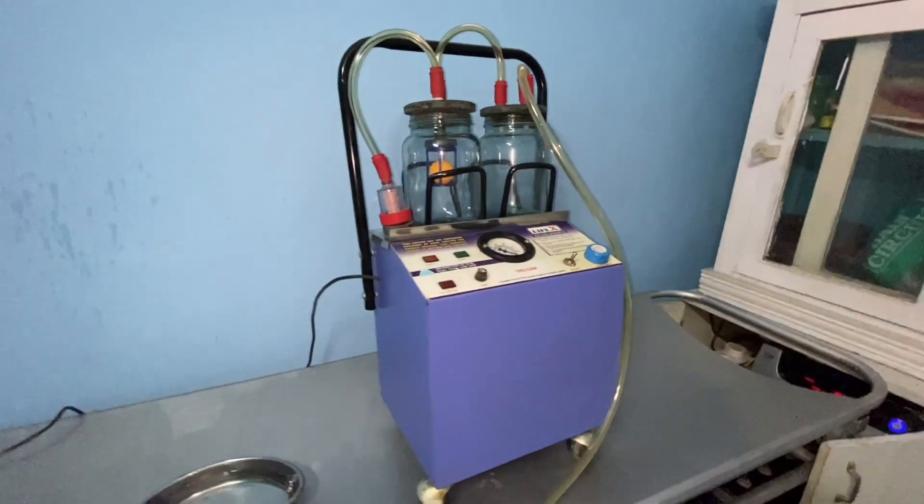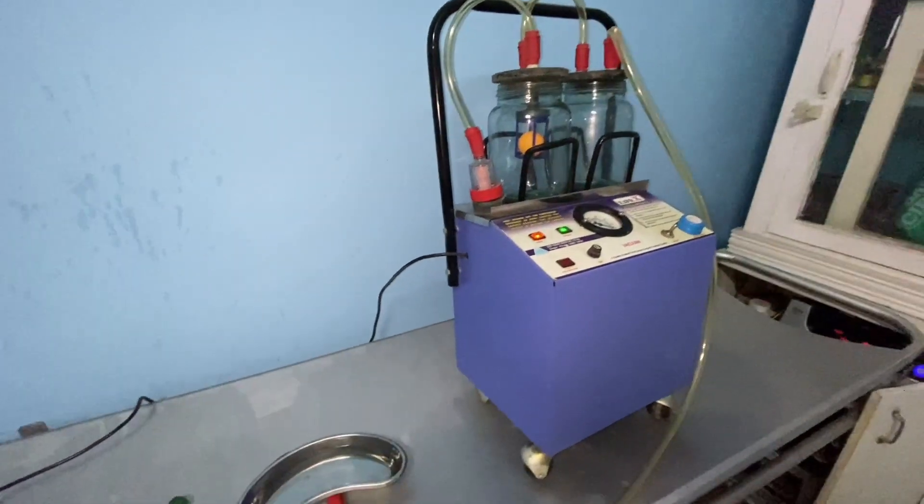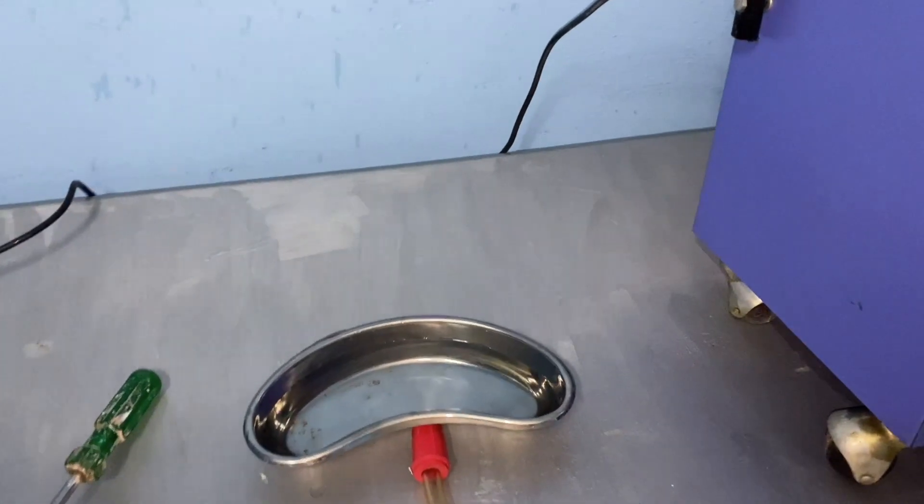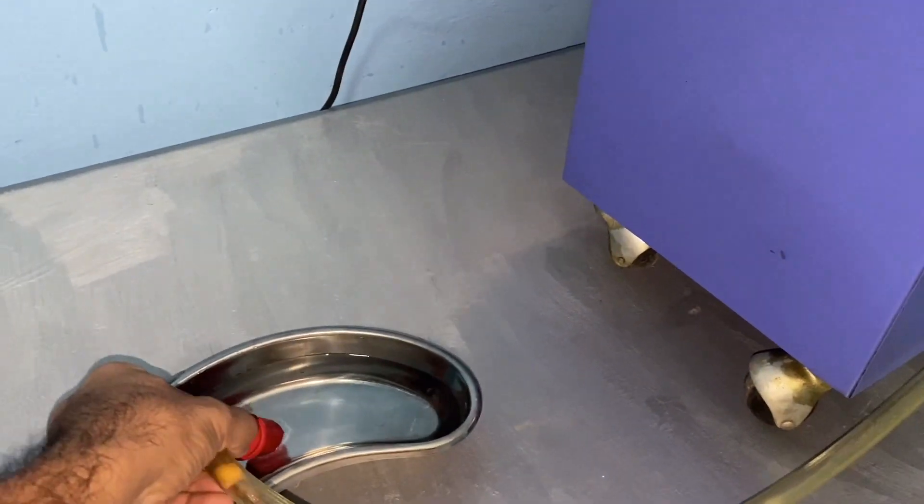Hi, this is Bruin here. Today I'm going to demonstrate the maintenance of this suction wand. If it's not sucking properly, you need to service it.